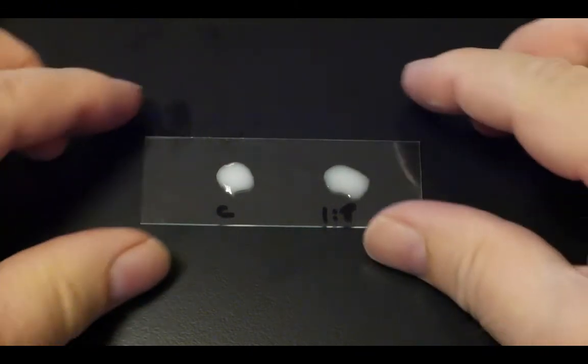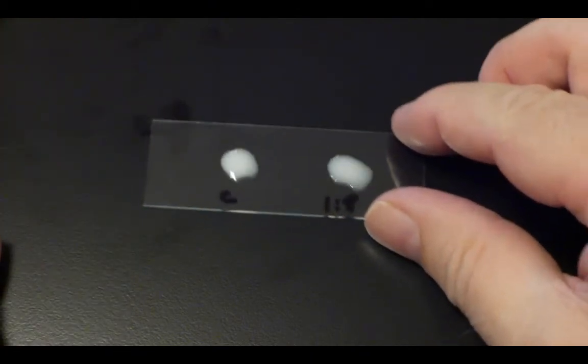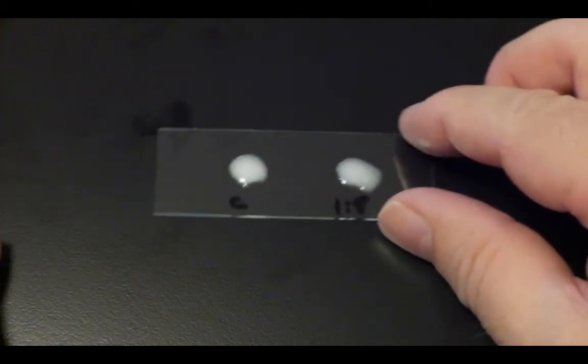Once you've mixed the samples you now need to rotate the slide for about three minutes.